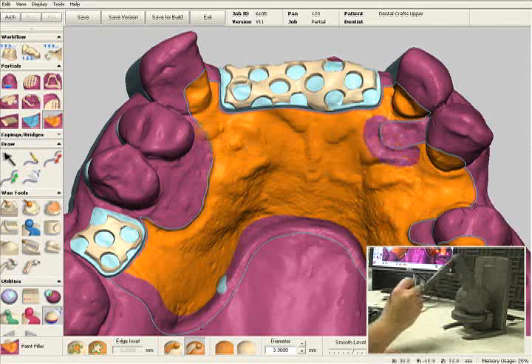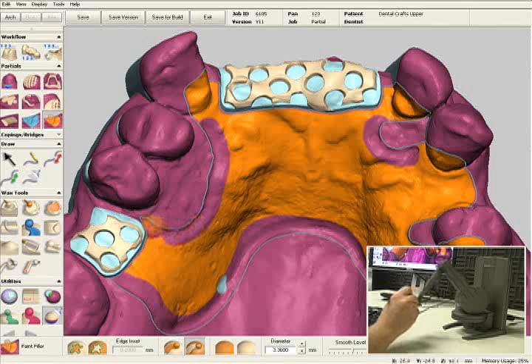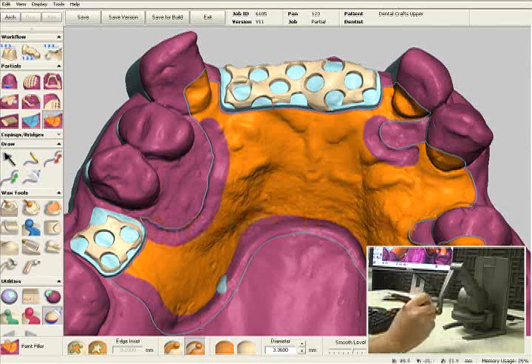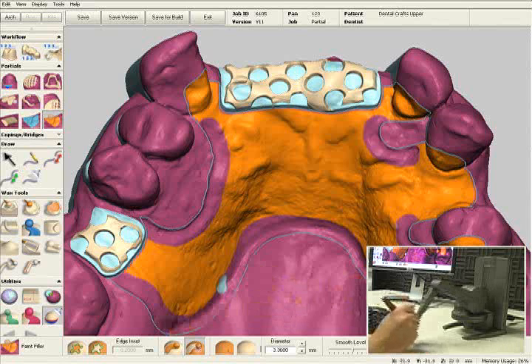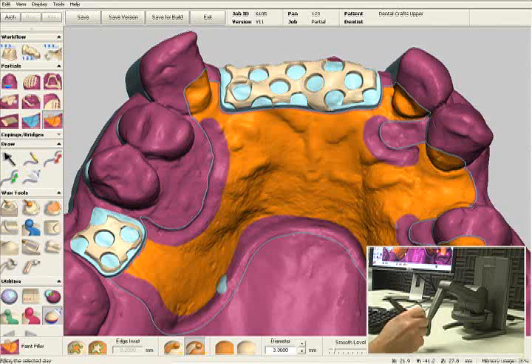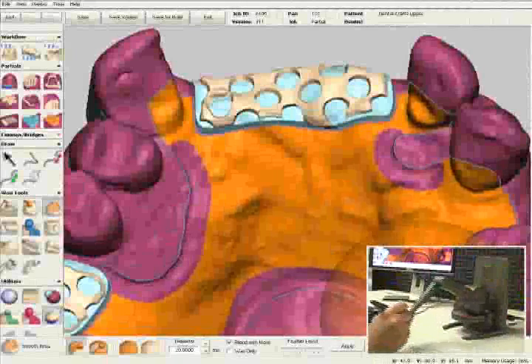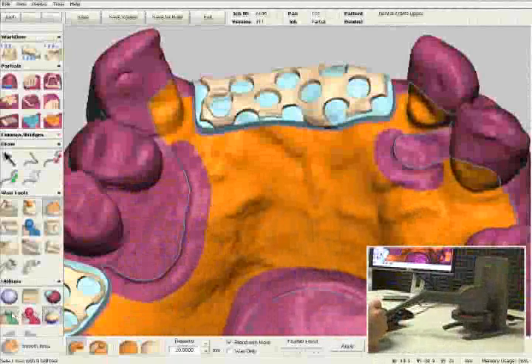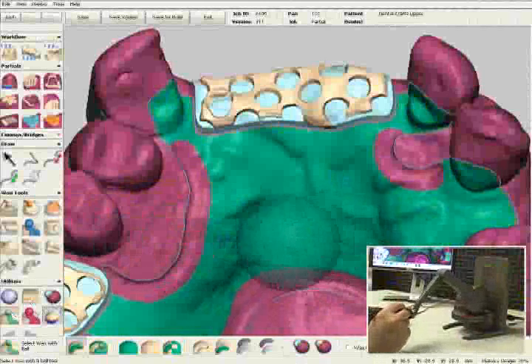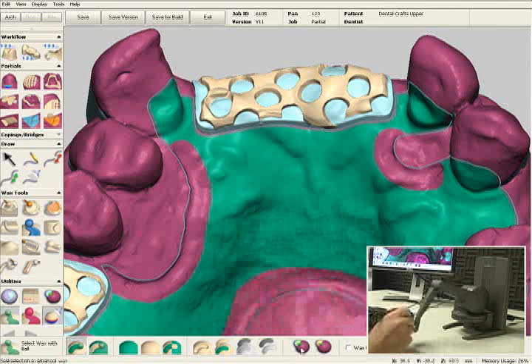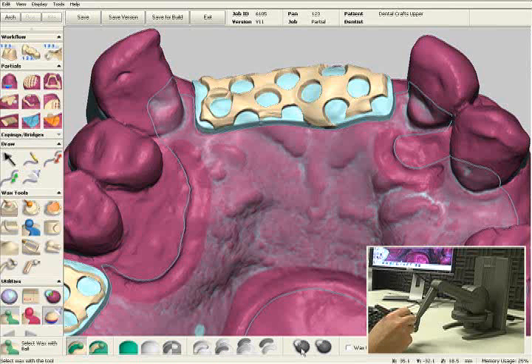Right now I'm removing it from the bead lines. Everywhere else, we'll add a little bit of block out wax. Once you're ready, we'll click the Apply button. Now I'll select the Select Wax with Ball tool — the orange color changes to green — and I'm going to click on Add to Block Out. All of that wax has been added to the digital refractory model.